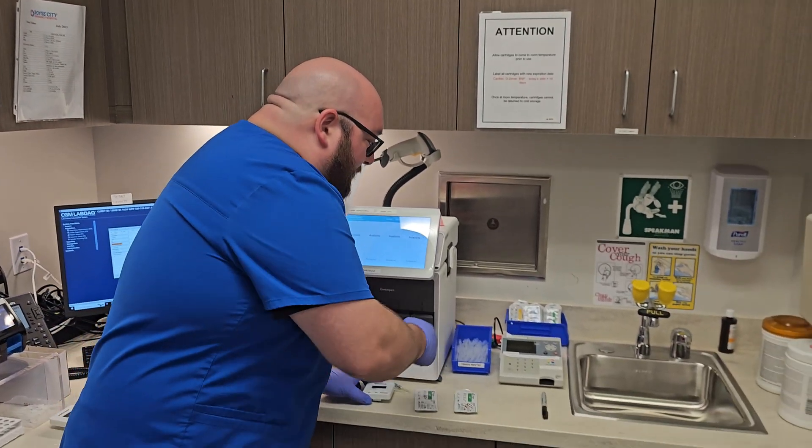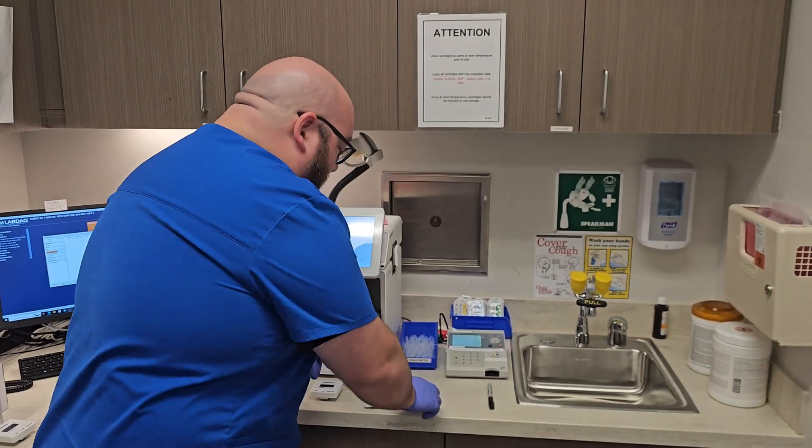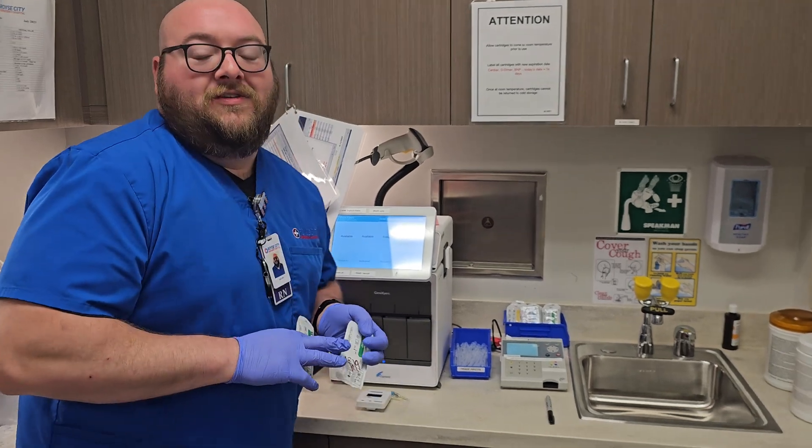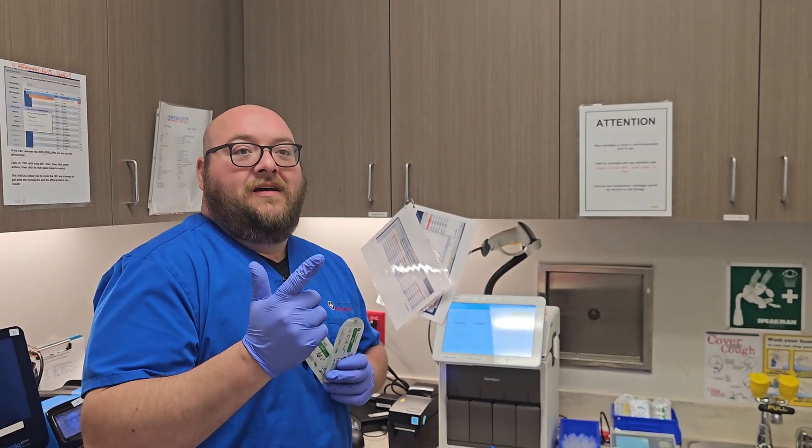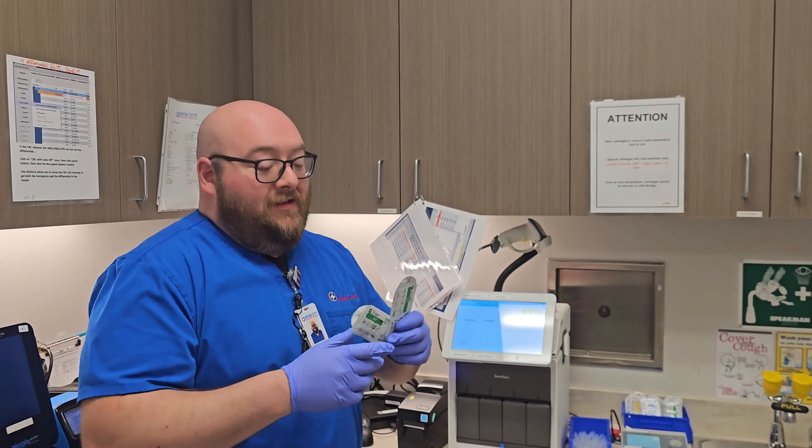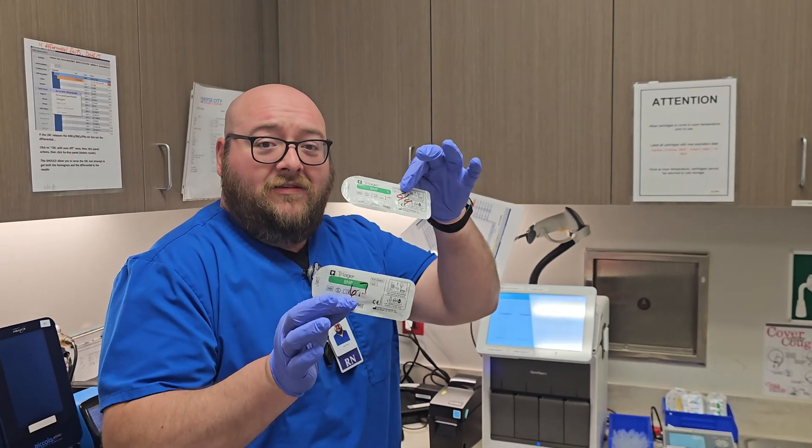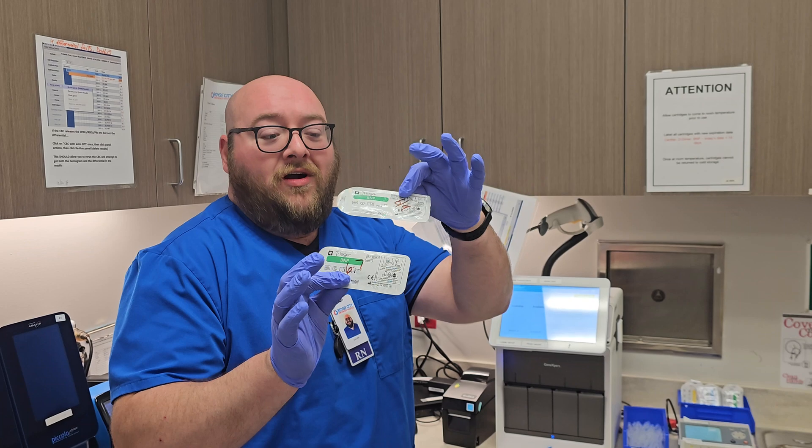Alright guys, so today we're going to do QC on the triage meter. These QCs are done monthly by lot and by shipment. The good news is the controls are the same for the cardiac, the BNP, and the D-dimer.